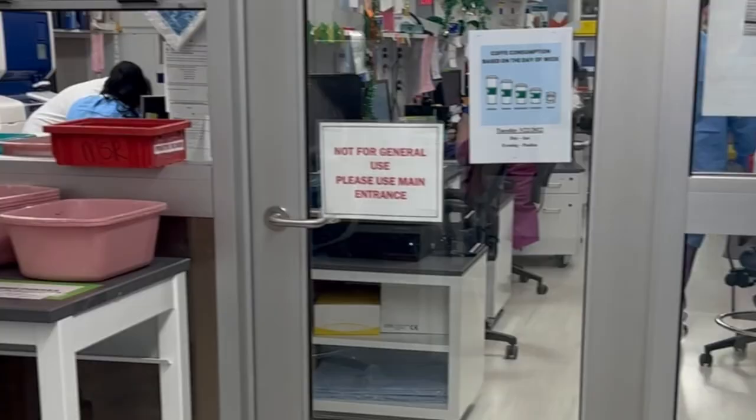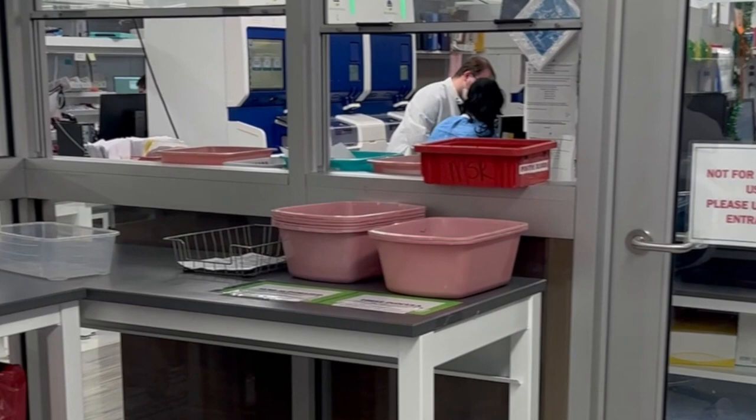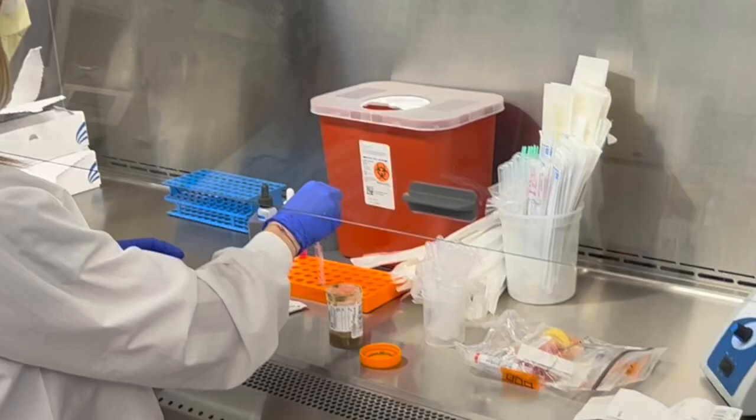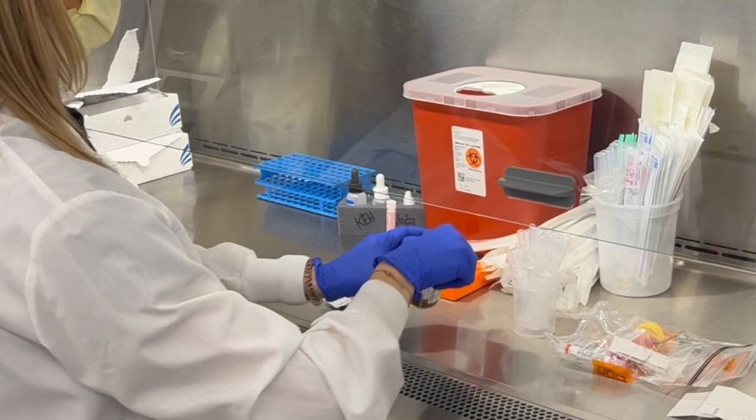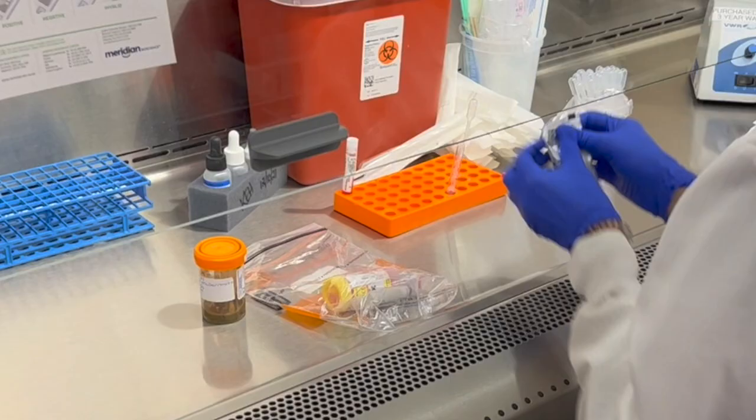This is the specimen setup and stat test area. A stat test is a test with a quick turnaround time, generally less than one hour, as results are needed urgently for patient care. In this area, some of the tests we perform include rapid antigen detection assays for malaria, legionella, and streptococcus pneumonia. Here we observe a technologist performing a lateral flow assay to detect clostridioides difficile in a patient's stool.